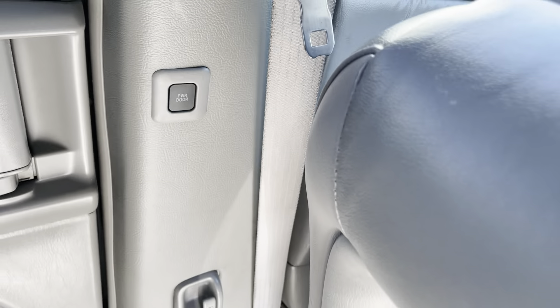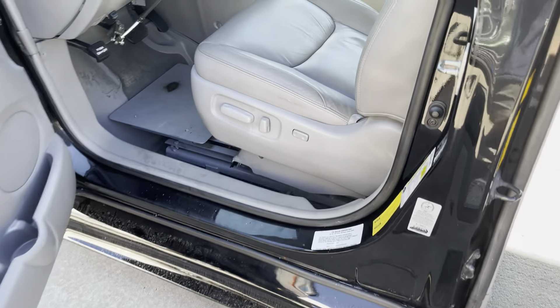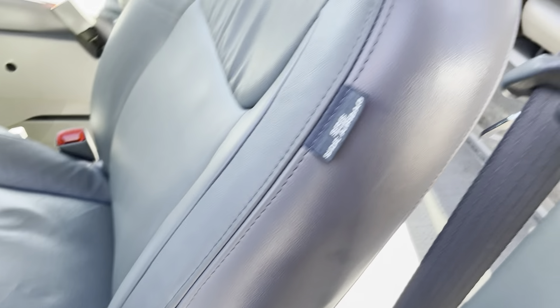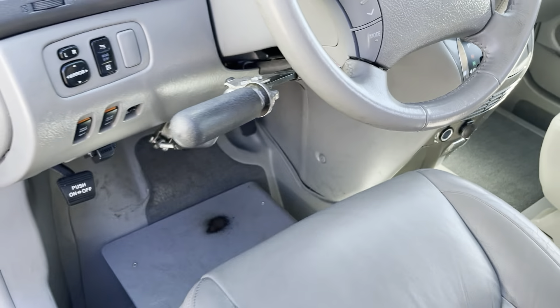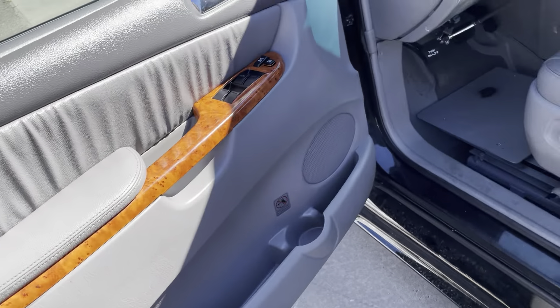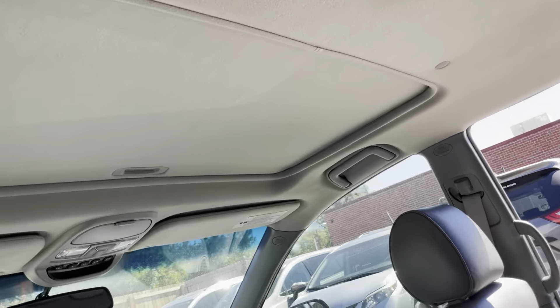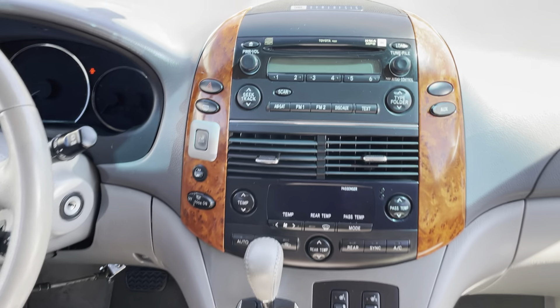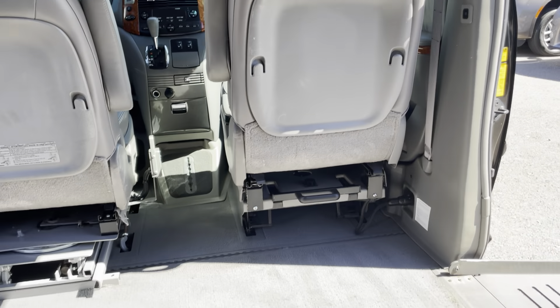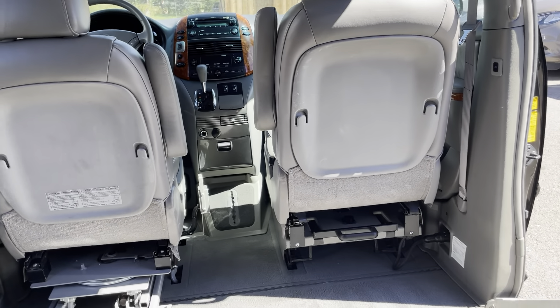We also have OEM controls on the side here. The seat controls make the seat move forward and backward and adjust the backrest. The hand controls currently installed are the Monarch MPS — just a standard manual hand control. Inside you've got wood grain interior trim, CD, radio, three-zone climate control. The front seat base can actually come out as well — we have pictures of that on the website.